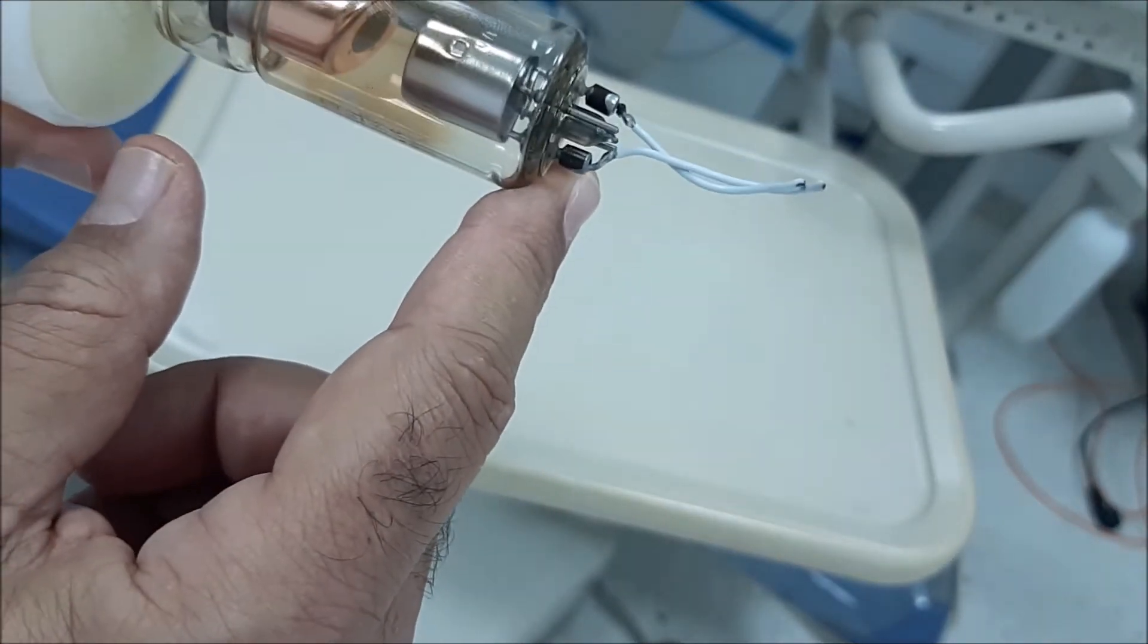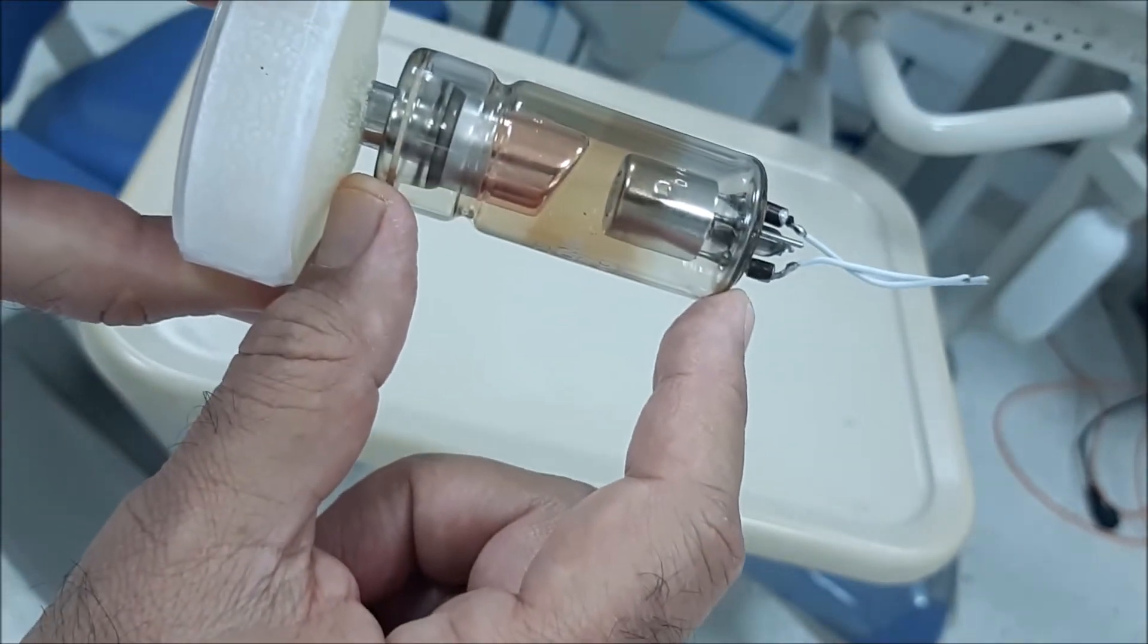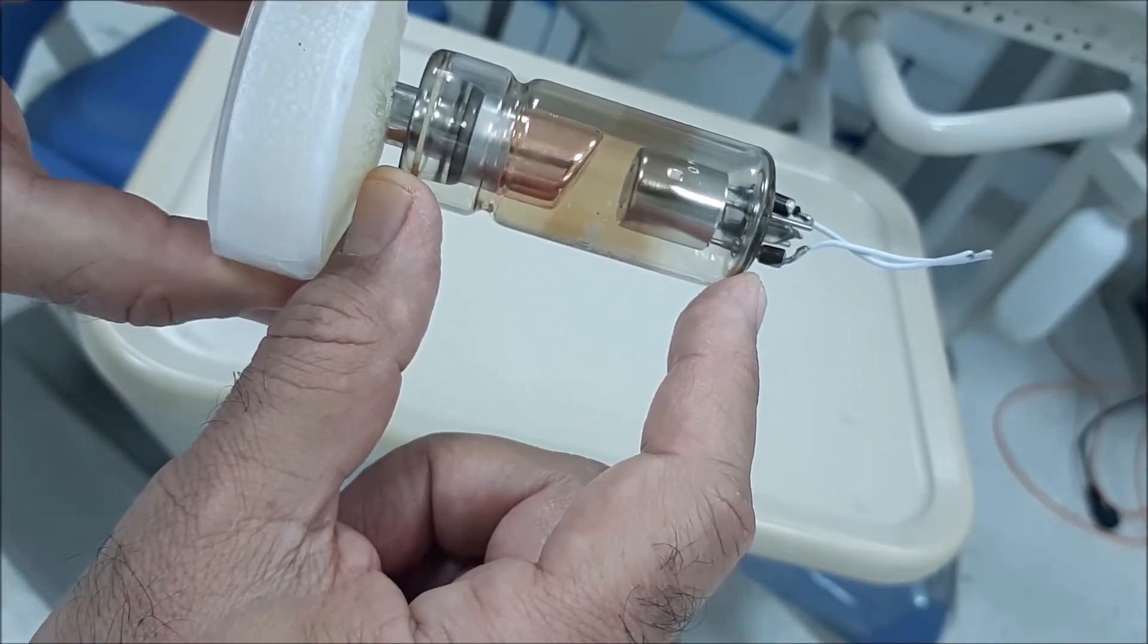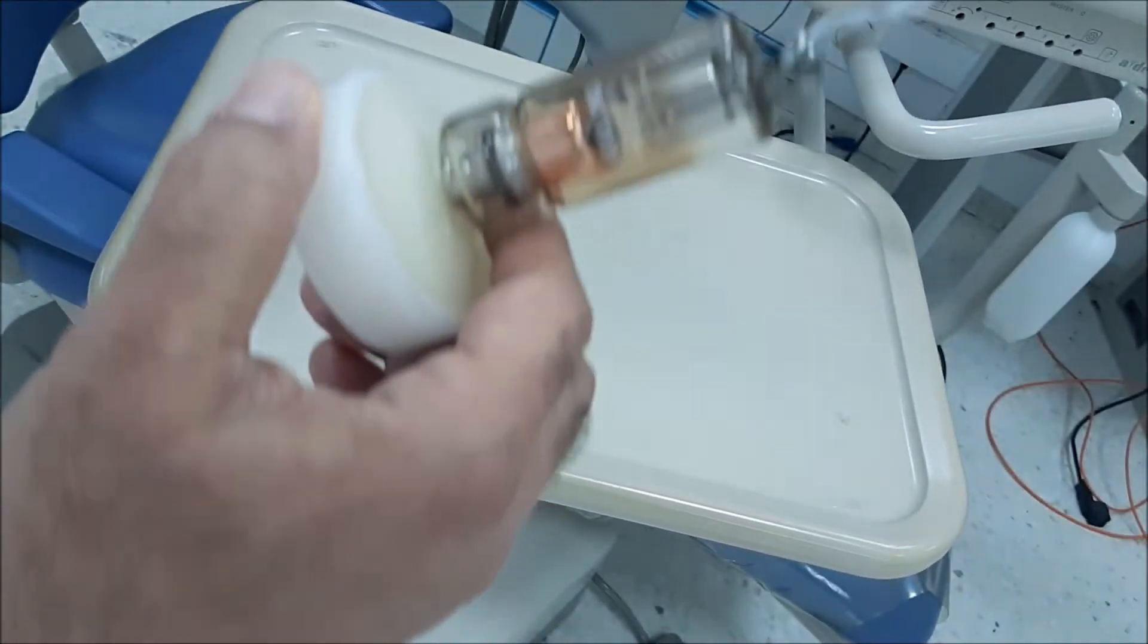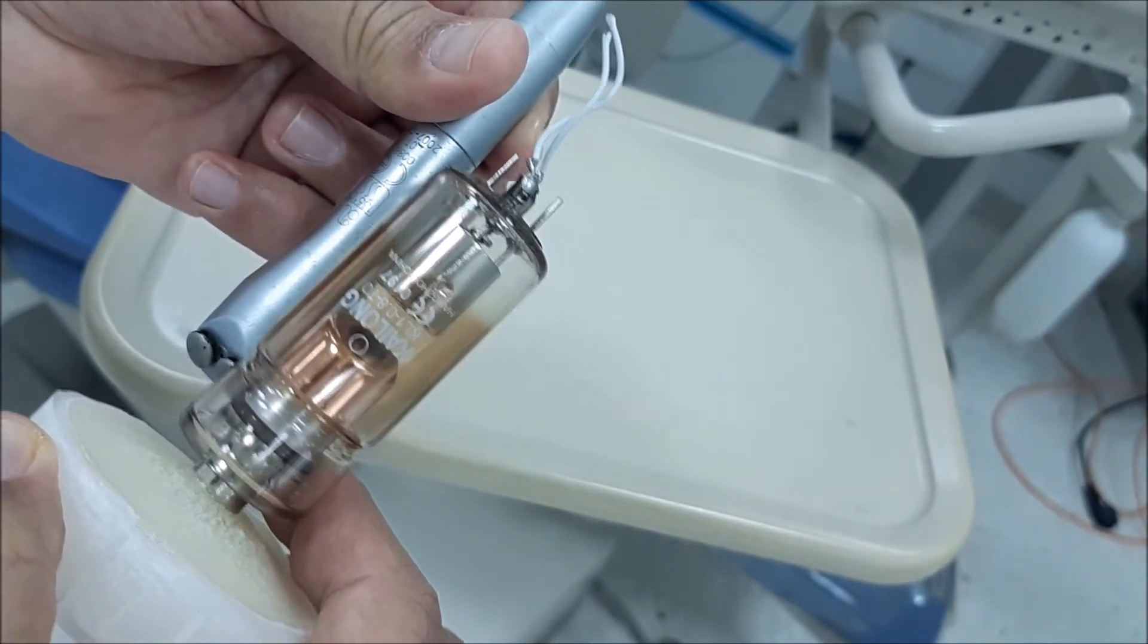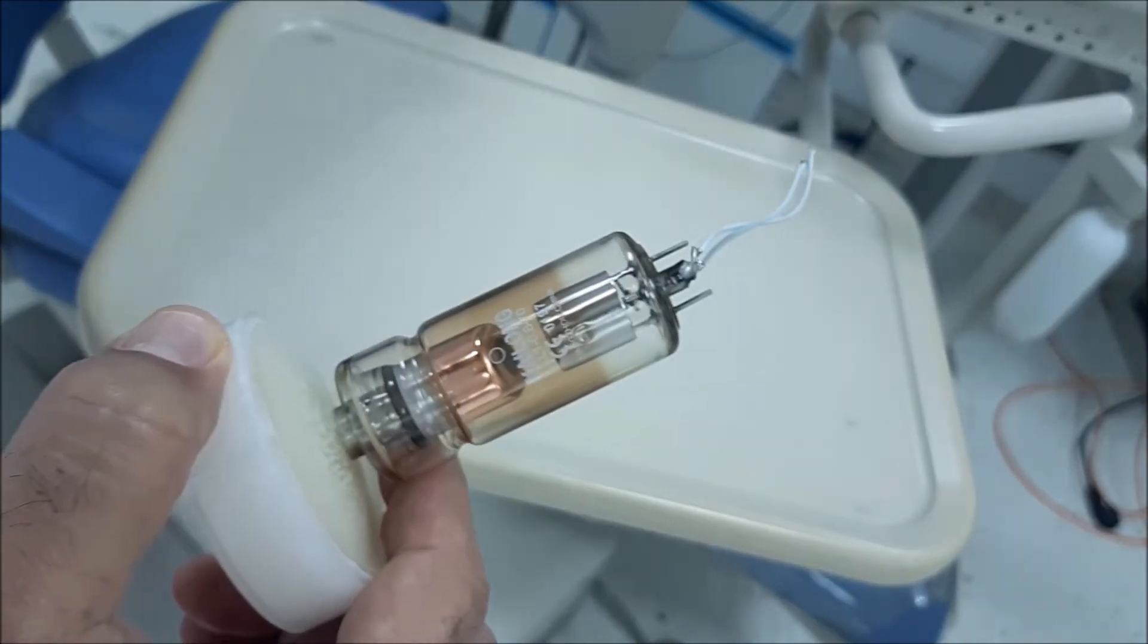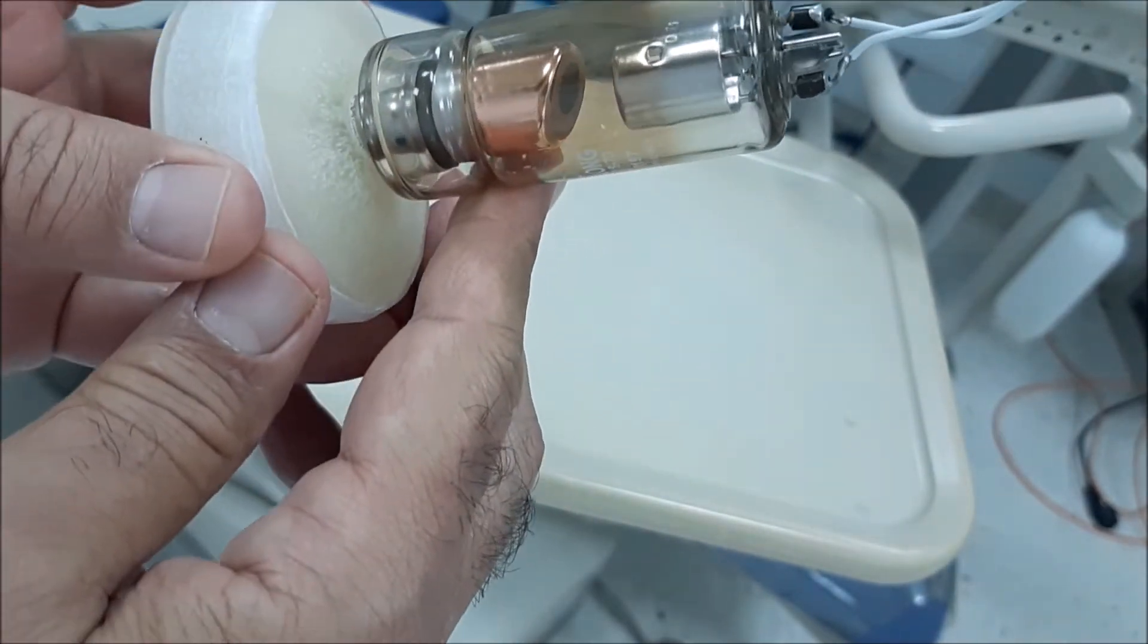This is a glass tube. See, this is the size - if you compare it to an air syringe, it will be similar in size. In some machines it will be smaller, but the components are the same.